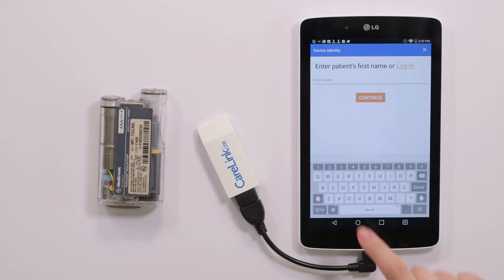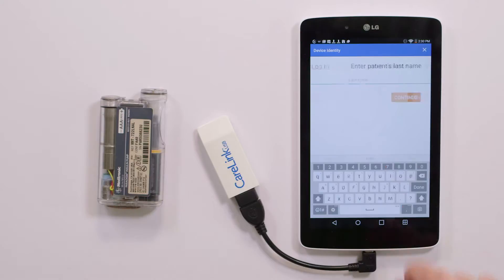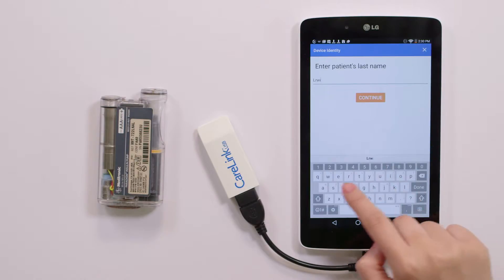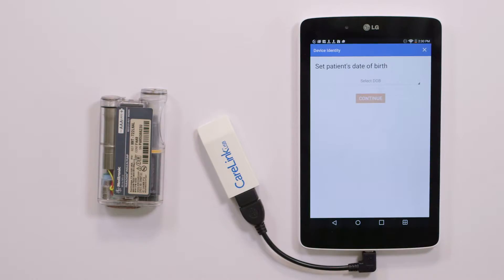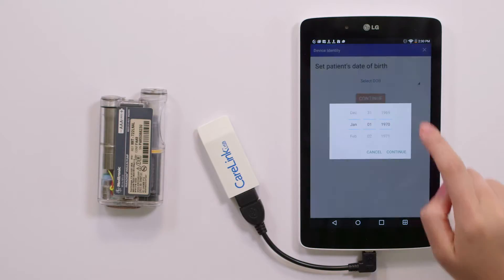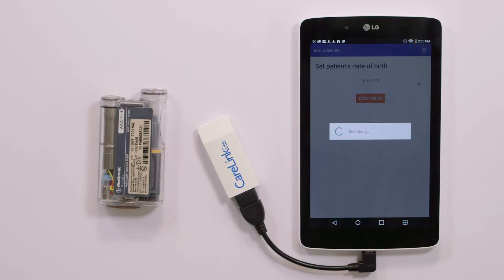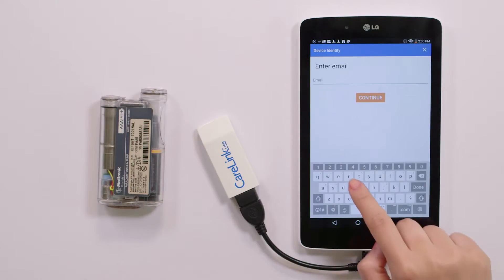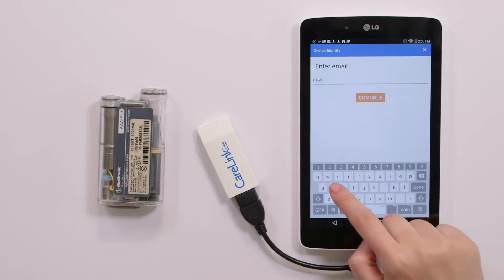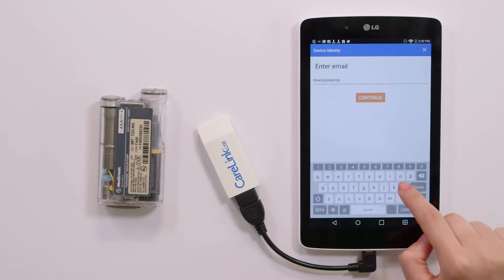Type in your patient's first name and tap Continue. Enter your patient's last name and tap Continue. Tap Select DOB to enter your patient's date of birth and tap Continue. The email address field is important because it allows your patient to have access to their synced diabetes data at home.